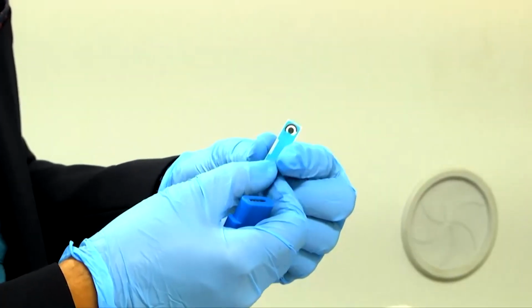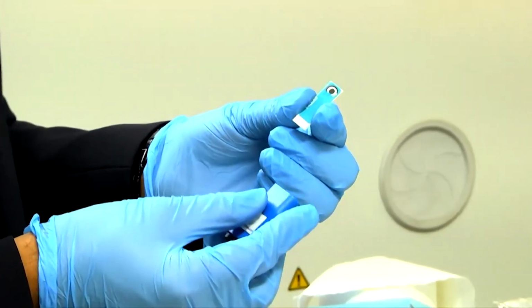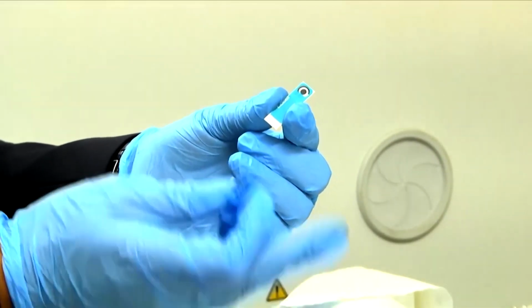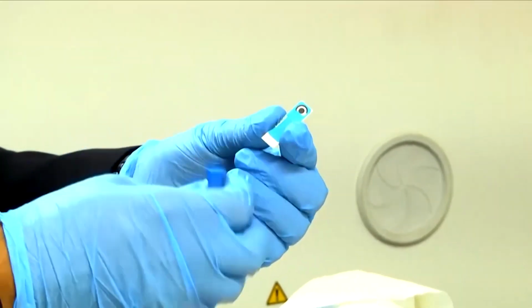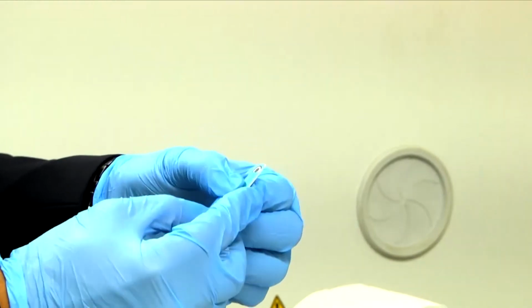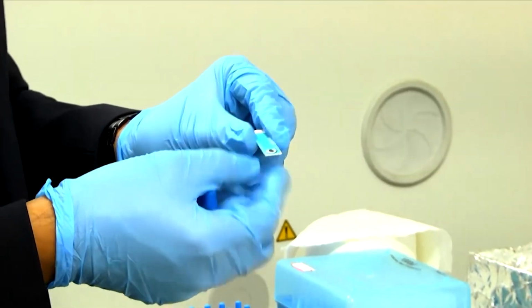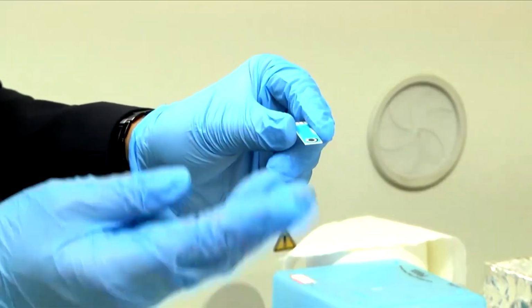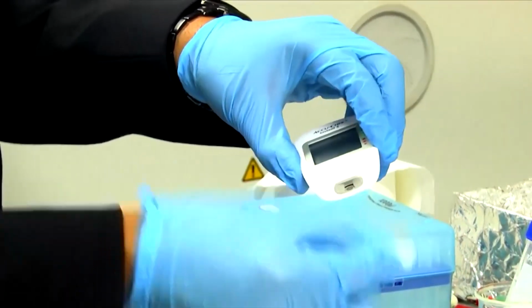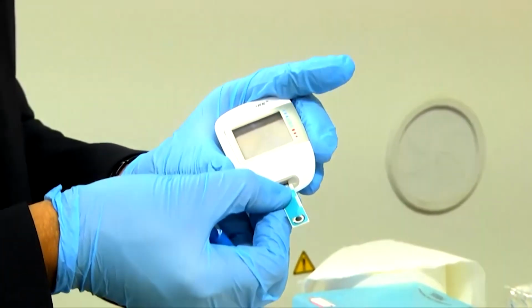Not only glucose, different other analytes can be detected, as I taught in the class. So, let us show you how we can use these electrodes in the lab setting for fabrication with different materials. Last class we showed you the synthesis of nanoparticles. So, we can drop cast here. Suppose you synthesize some gold nanoparticles or something else, you can drop it here. Then, instead of this chip, we can insert this chip here, same technology. Instead of glucose, you can detect another analyte.